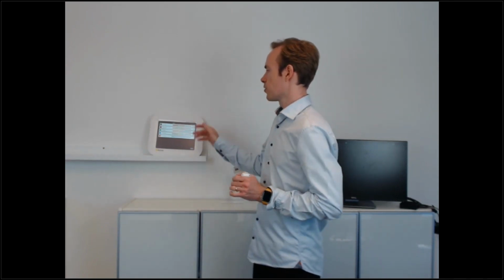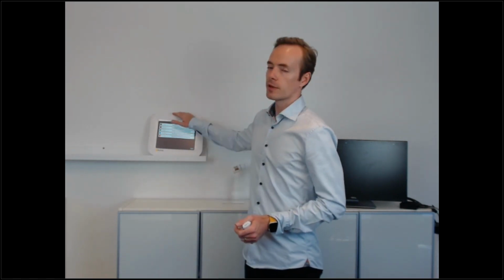We made it primarily for the interventional X-ray field, but the radiation would be the same for surgery. It's just that if you have a C-arm that moves around, then it might be a little bit tricky to also move your screen around. But if you have a C-arm that lives in one operating room, then you could just mount, for example, this one anywhere.